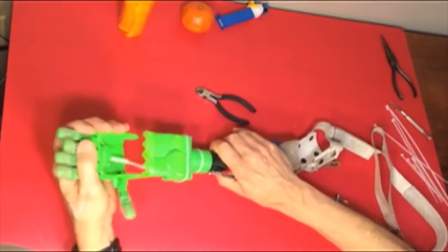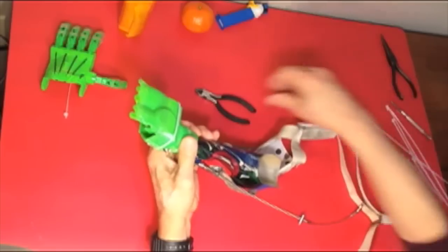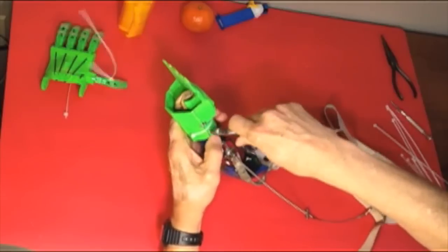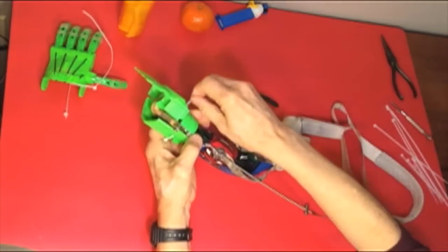The prosthetic hand is attached to the prosthesis and the harness that is traditional type that was created for Wilhay by a prosthetist.